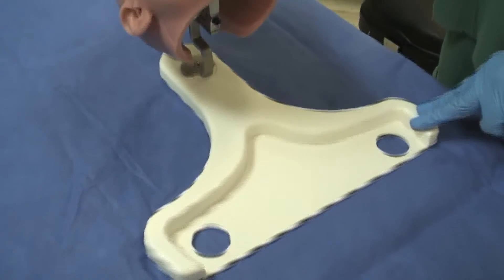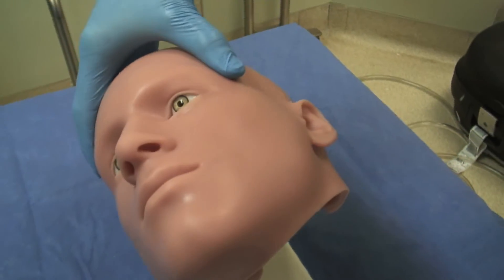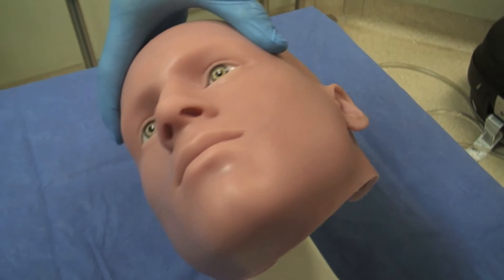To break it down, let's start with the patient head, which fits under the body form and allows for perfect rotation and pitch.